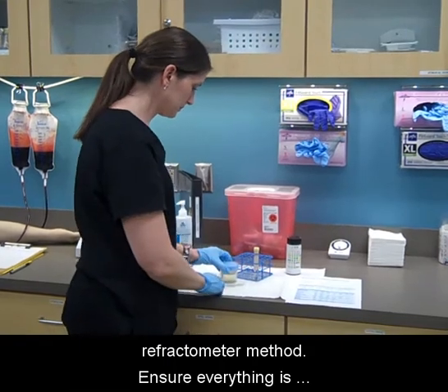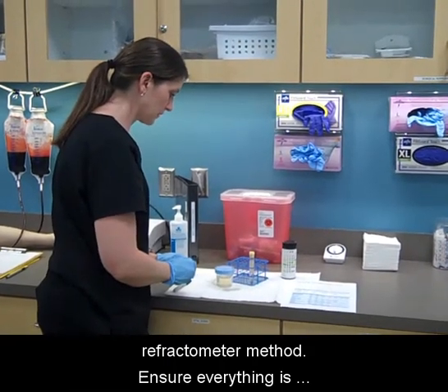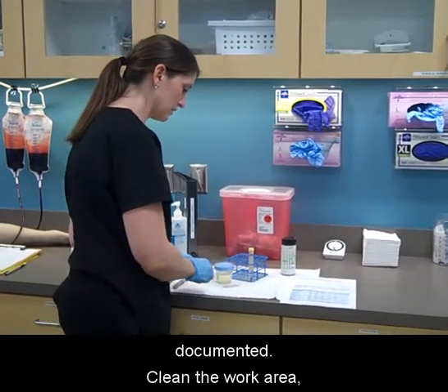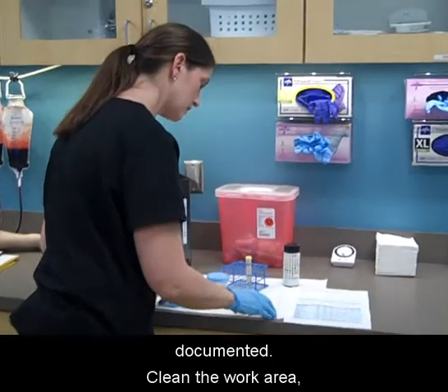Ensure everything is documented, clean the work area, remove gloves, and perform hand hygiene.